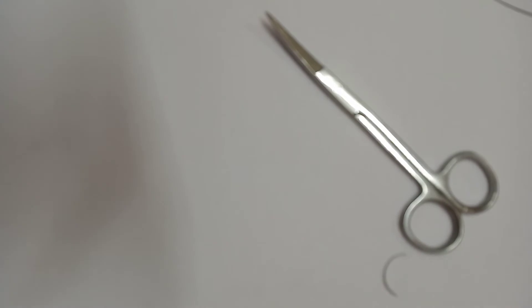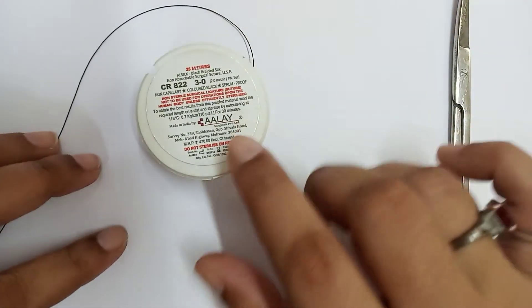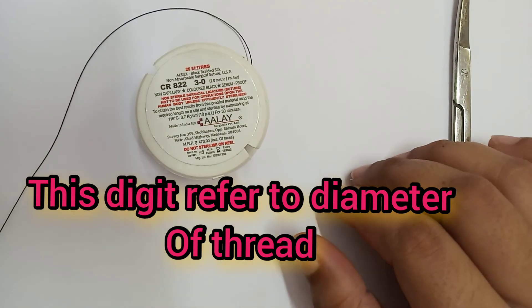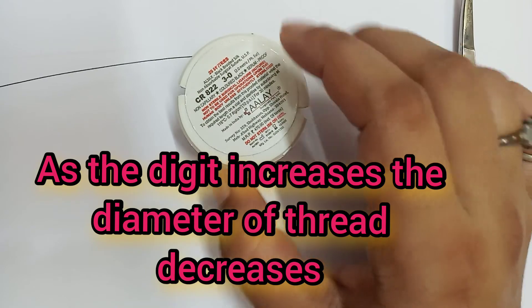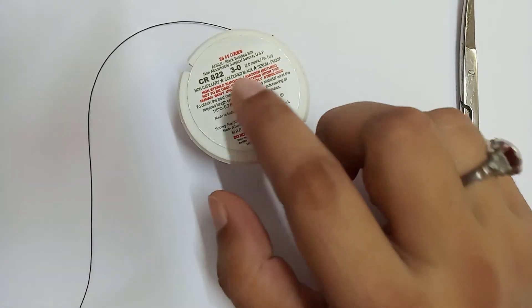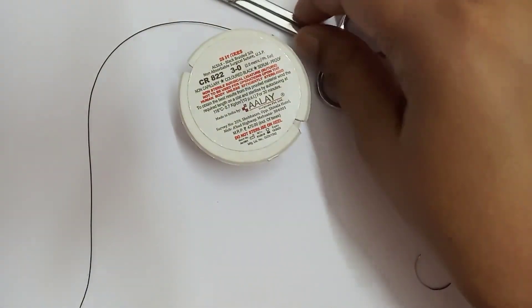Now we are going to see some suture material — suturing needle, thread, etc. Here is the thread. The digit written here is 3-0, or three zero. This digit refers to the diameter of the thread. As the digit increases, the diameter of the thread decreases, so the prefix number is inversely proportional to the diameter. If the digit is 4-0, the diameter is less than that of 3-0. This is a scissor, and this is a needle holder.